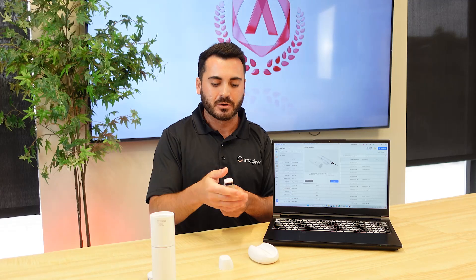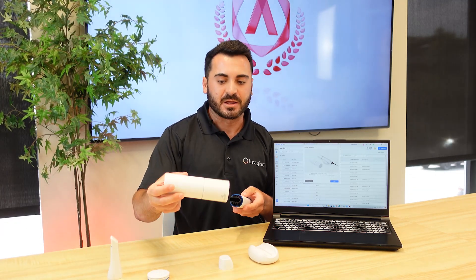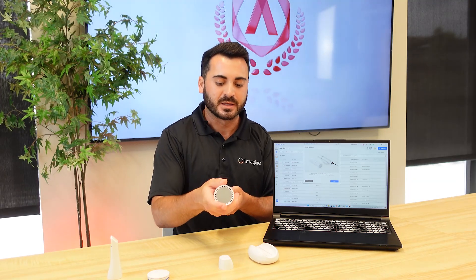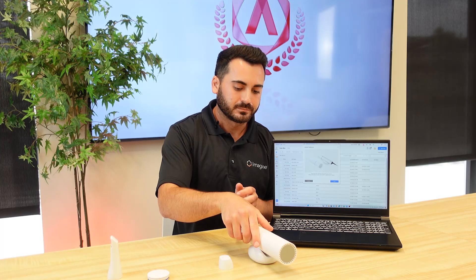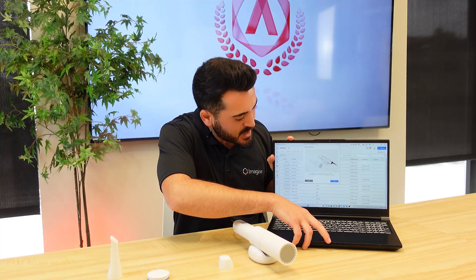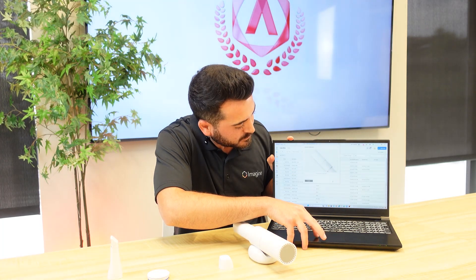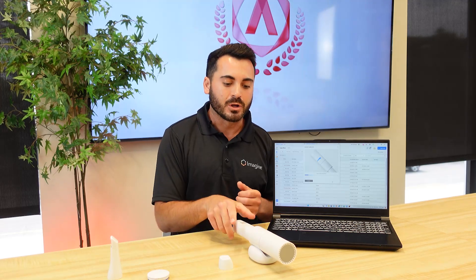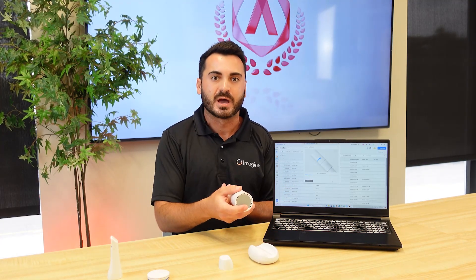You want the circle and the play button to be in perfect alignment with no gap in between the two shapes. Once you remove the cap, go ahead and remove the scanner tip from the scanner and orient your scanner into the calibration tool until you hear a clicking sound. Once the scanner is in place, you can go ahead and select next. From here, the scanner is going to acquire its first set of data. There's going to be a total of nine calibration steps throughout this process, where you should actually be able to see the calibration tool begin to elongate as you go through that process.